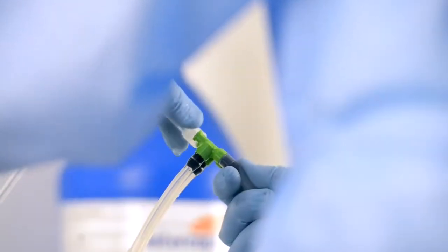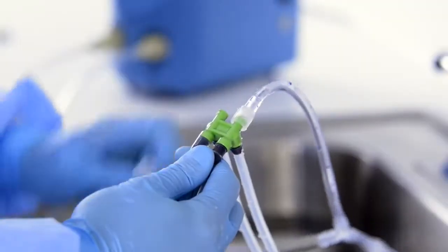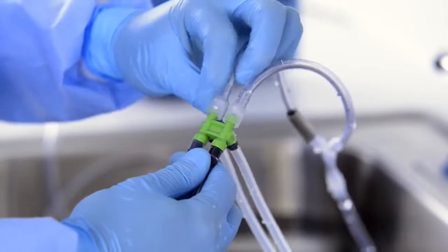ScopeBuddy is compatible with all models of flexible endoscopes and easily connects to endoscope cleaning adapters.